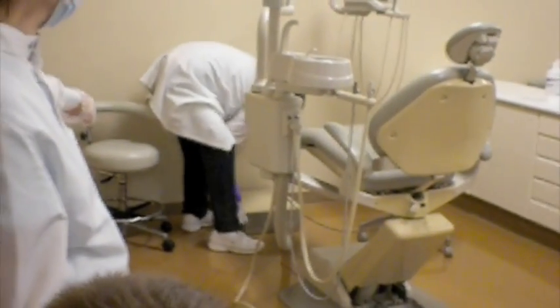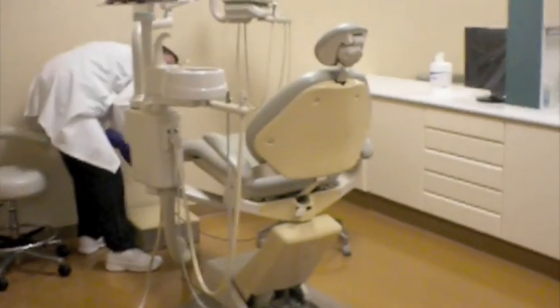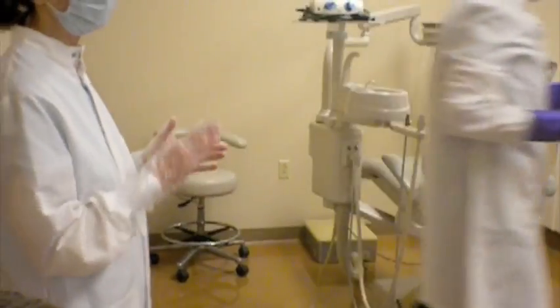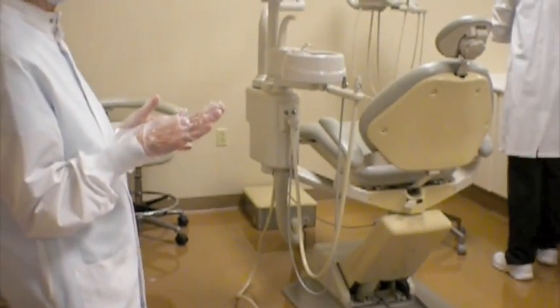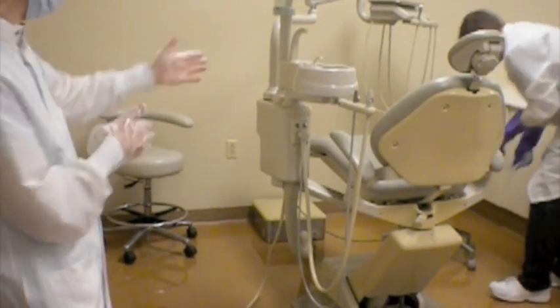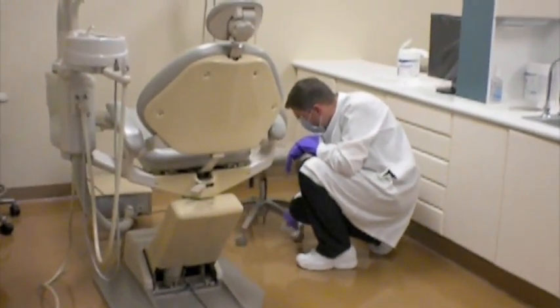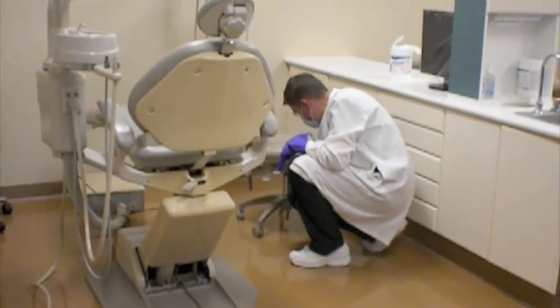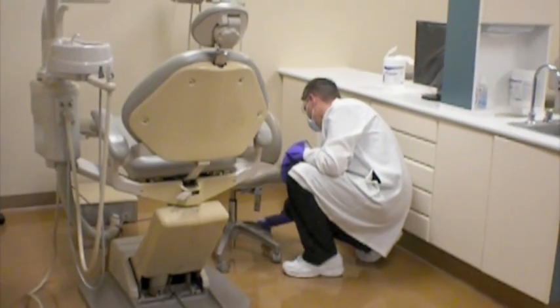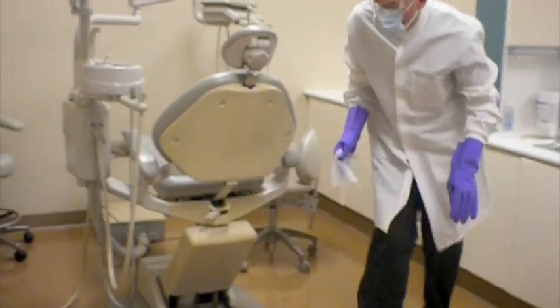And then he'll move to the base of the assistant stool that is on this side of the chair. He'll do the metal rungs there and the tops of the rollers on the wheels, so that whether it's an assistant stool or an operator stool, and you'll see he's doing the operator stool on this side first. We'll do the rungs, and then the top of the casters on the wheels, the same thing on the assistant chair, and then he has completed the sanitization wipe of the unit.